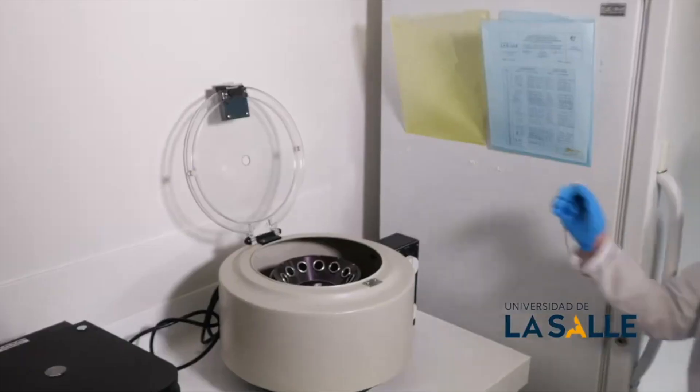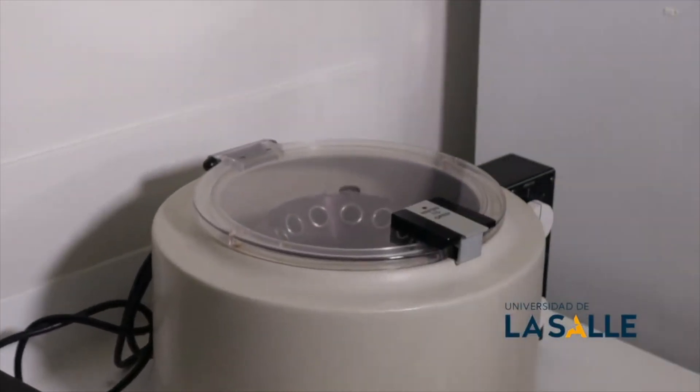These tests are complemented with other diagnostic tests on the clinical side. We also perform partial urine analysis to know its physical and chemical presentation, including the study of pH, the presence of bilirubins, and to know the urinary density or specific gravity of our patient to determine if we have any kidney problem. We also check cellularity by microscopy, which allows us to detect possible alterations. In addition, we perform coprological and coproscopic analysis that allows us to know if there are parasites or possible alterations in the microbiota that require treatment or specialized consultation.